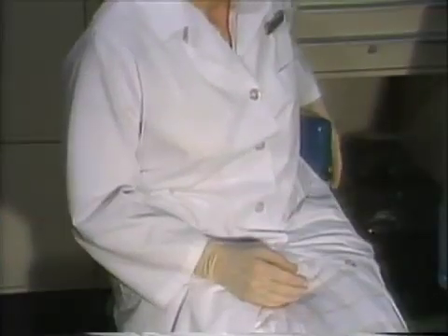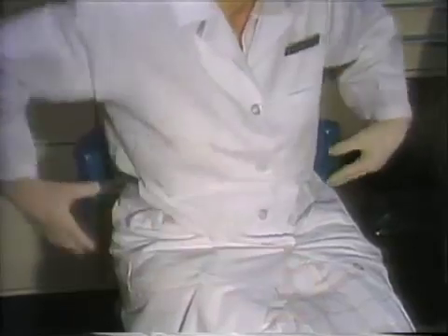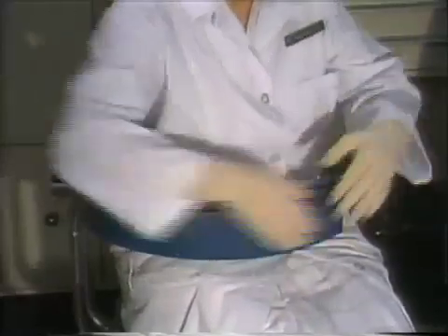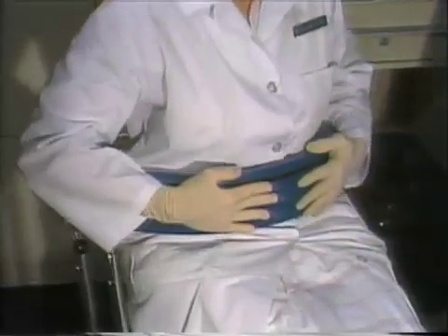For the abdominal rest, unscrew the knob to loosen and move the bar back to a comfortable position, then tighten the knob to secure.